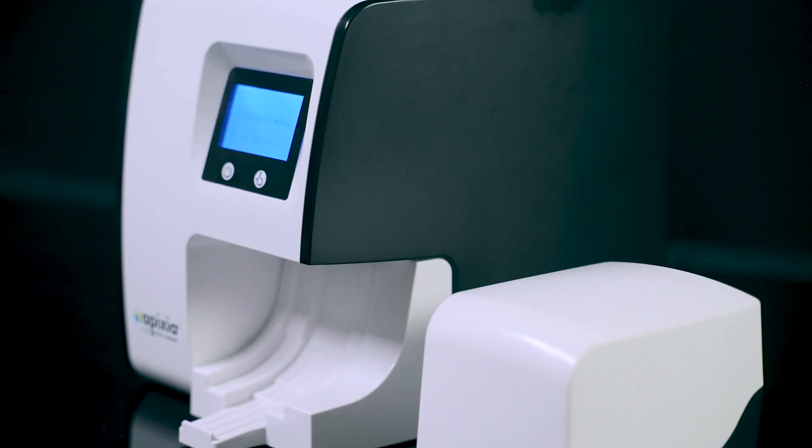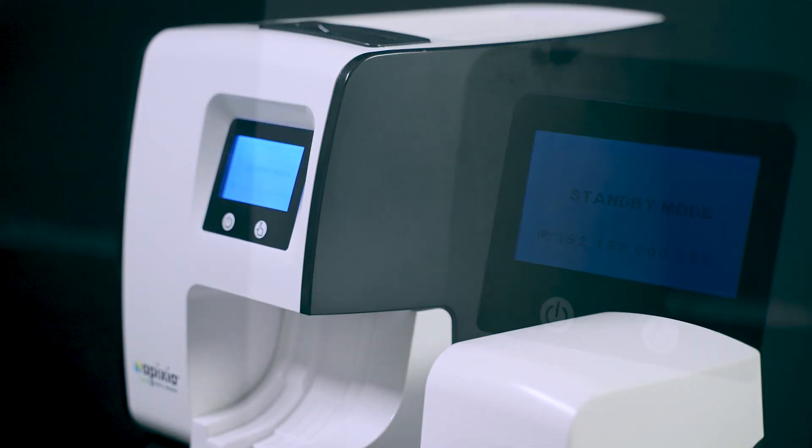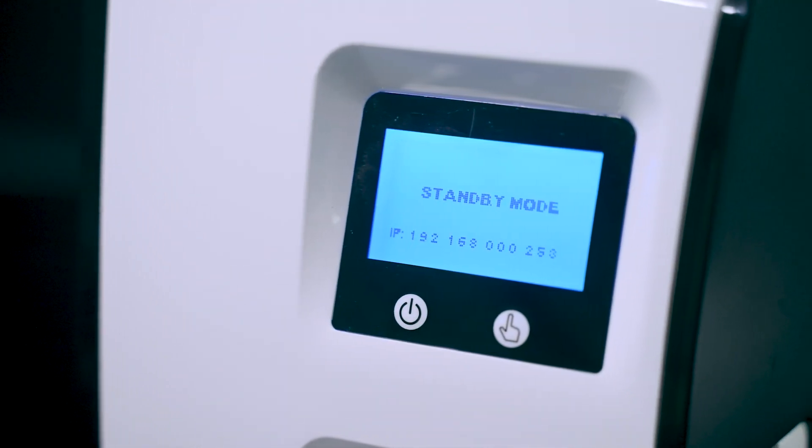Imaging with PSP plates offers all the flexibility and versatility of film, combined with the immediacy and environmental benefits of digital radiography.